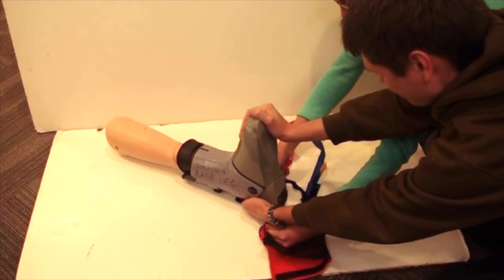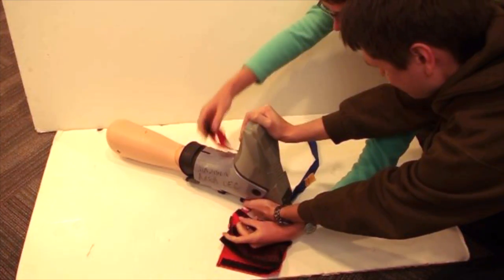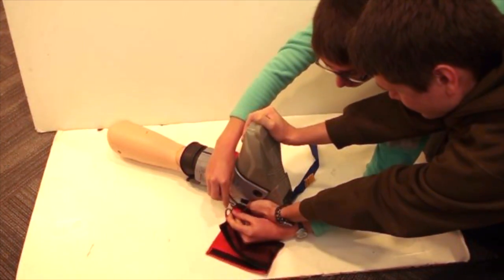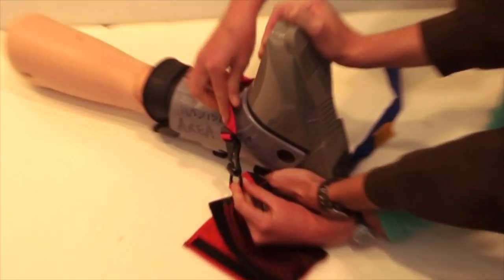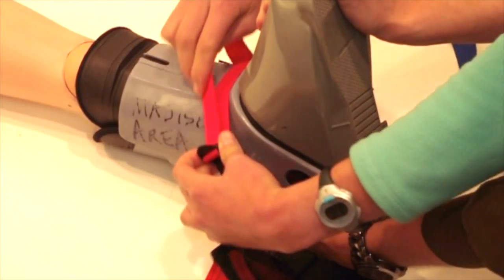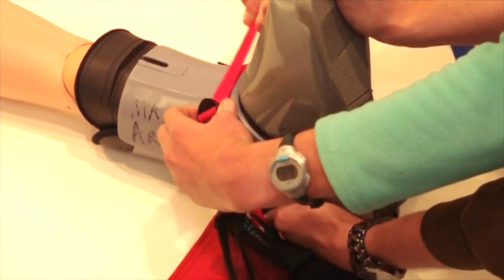The orange strap goes under the boot and clips to the ring, and then is tightened.